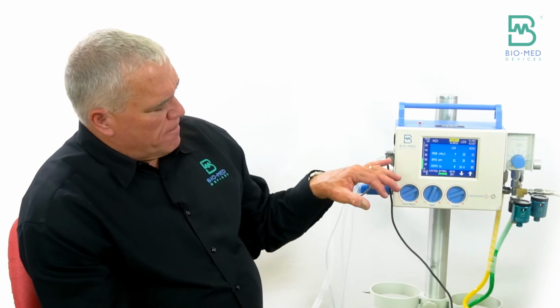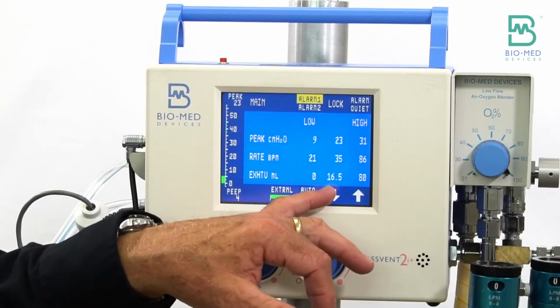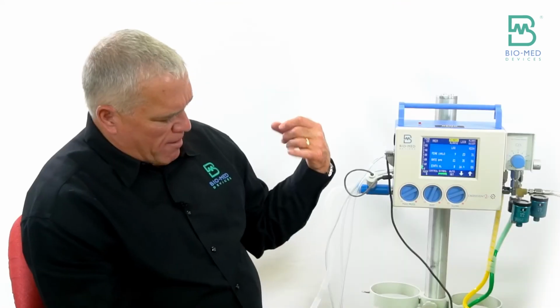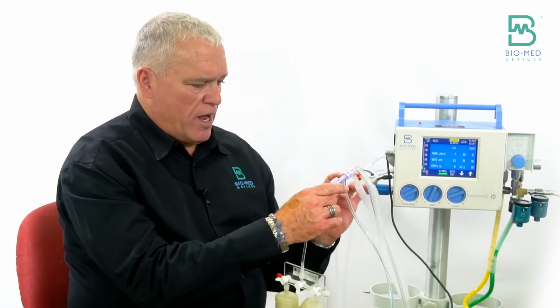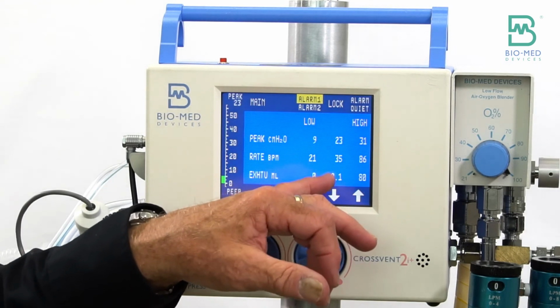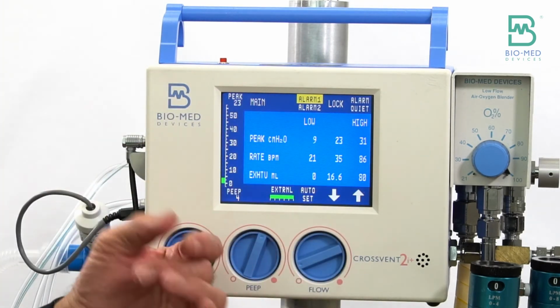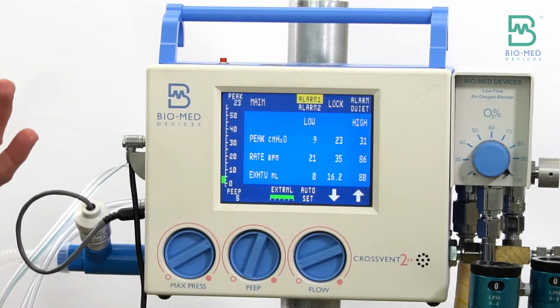So what we decided to do is just have that purge happen about every 30 seconds. So when you see that cal, like right there, that's when we're sending that purge flow down the flow sensor line to try to keep this clear. And so you just won't get that volume readout that one breath. That allowed us to actually read very accurately down to 2 mLs.